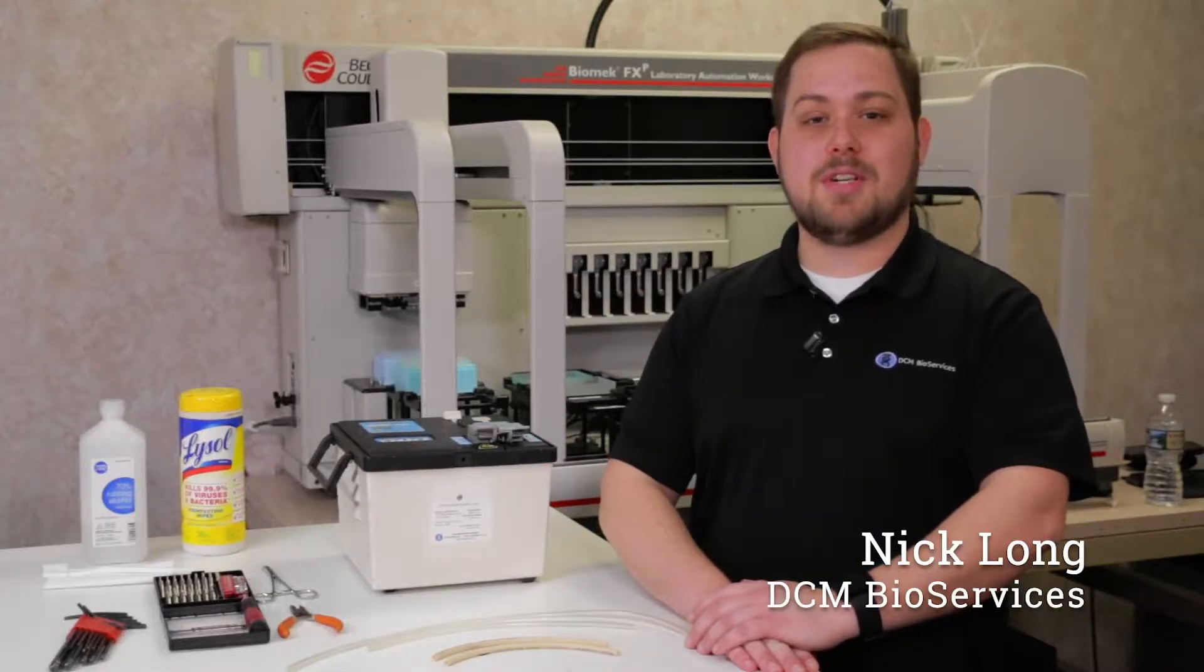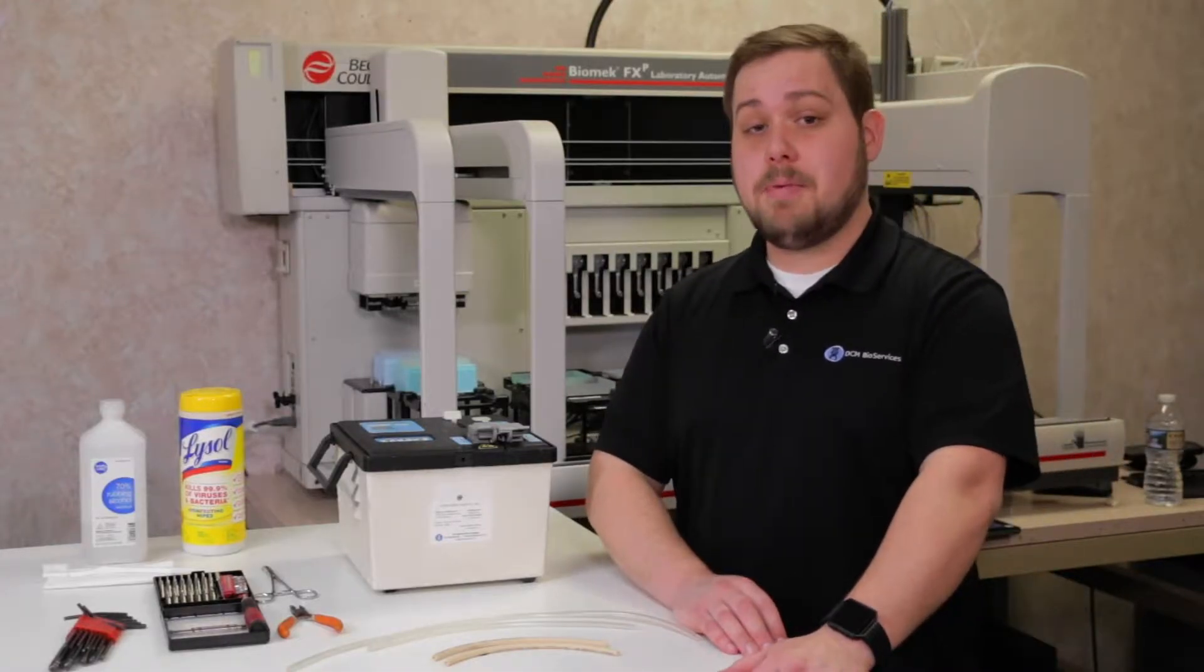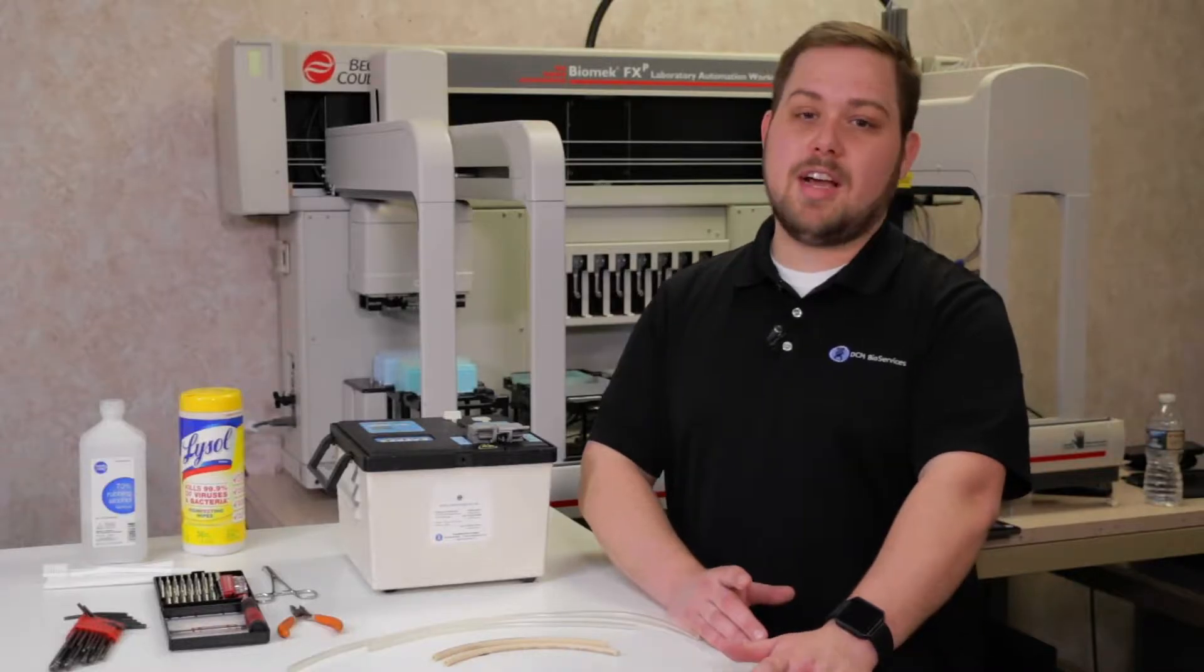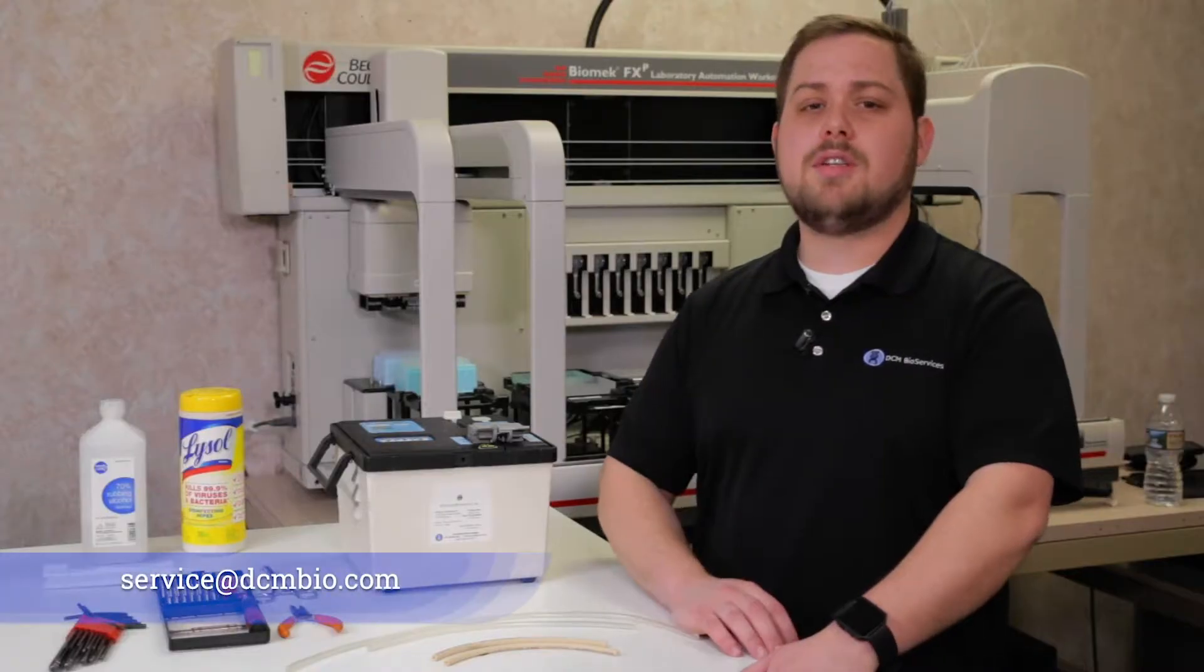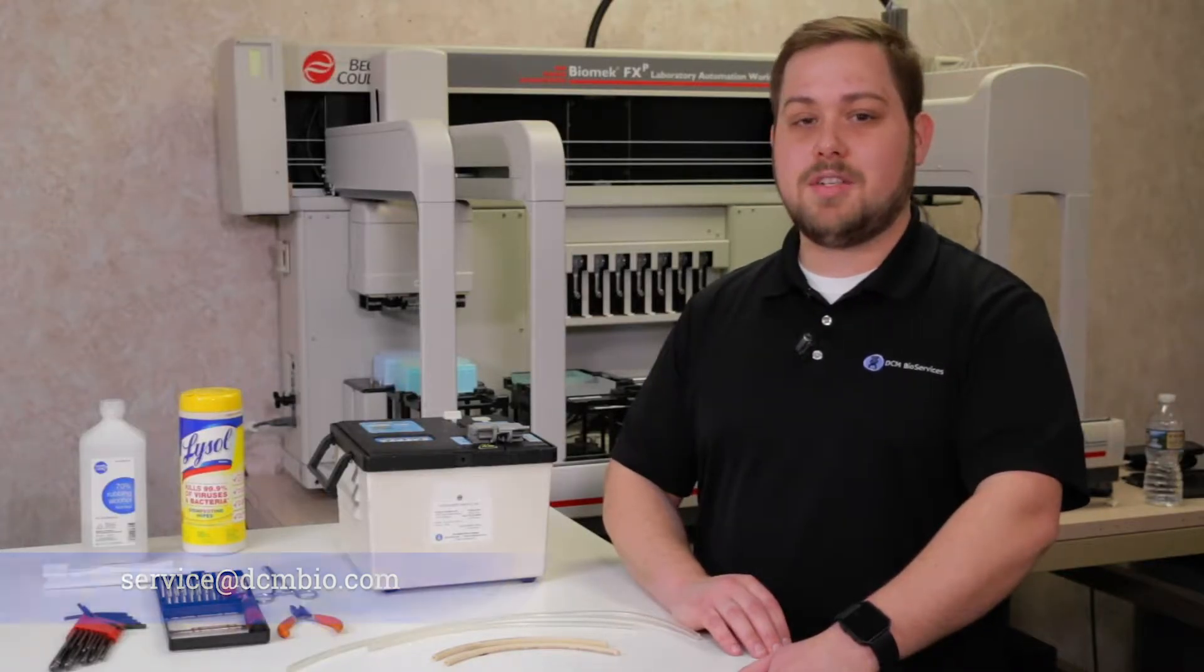Hello, this is Nick from DCMBio Services, and in this tutorial we're going to be showing you best practices and basic troubleshooting on your Terumo SCD2B tube welder. As always, if you don't feel comfortable performing any of these steps on your own, send us an email at service at DCMBio.com, and we'd be happy to assist you.